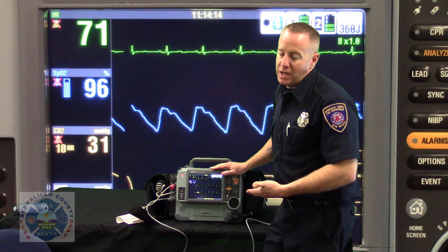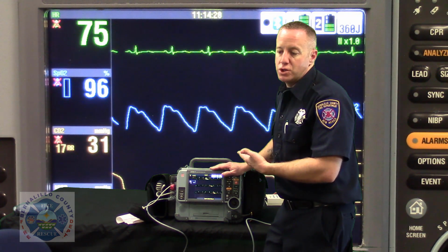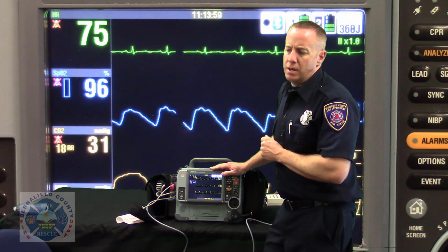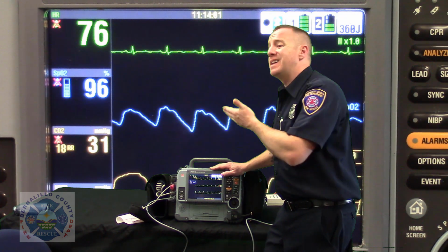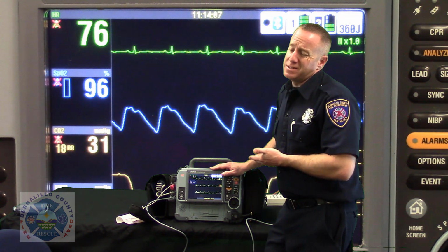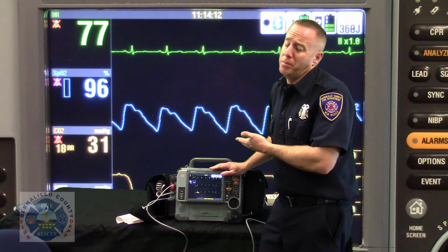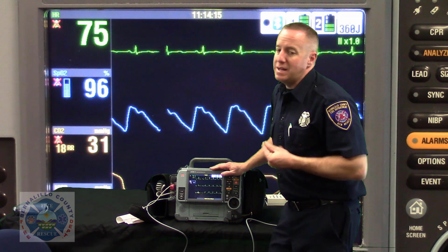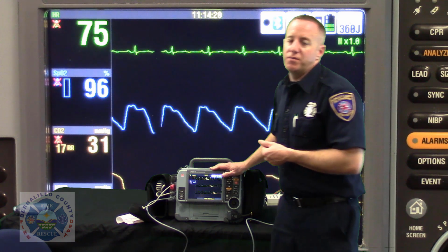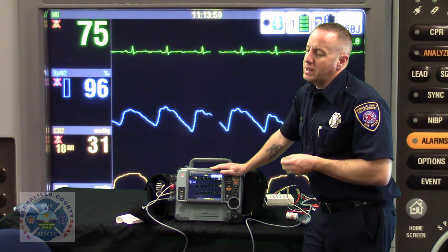And when we print out that EKG and we now go to interpret it, Lifepack has helped us out by ensuring that what we're seeing is what we're seeing, versus if I don't make that age adjustment and it defaults to a 50-year-old, but it's actually an 80-year-old, you can see how the electrical data that it's sending is expecting to send me an EKG of a 50-year-old female or a 50-year-old male when it's actually like an 82-year-old male and not a female. So we got to get that data entered in quickly and efficiently, and it needs to be correct for those reasons.